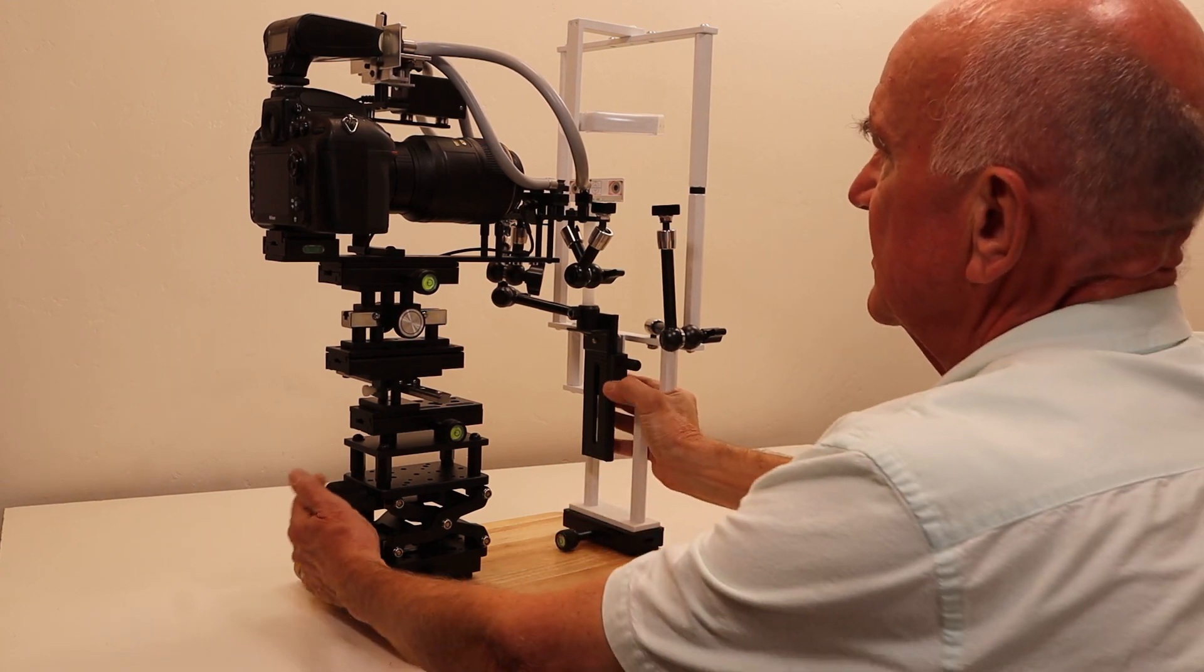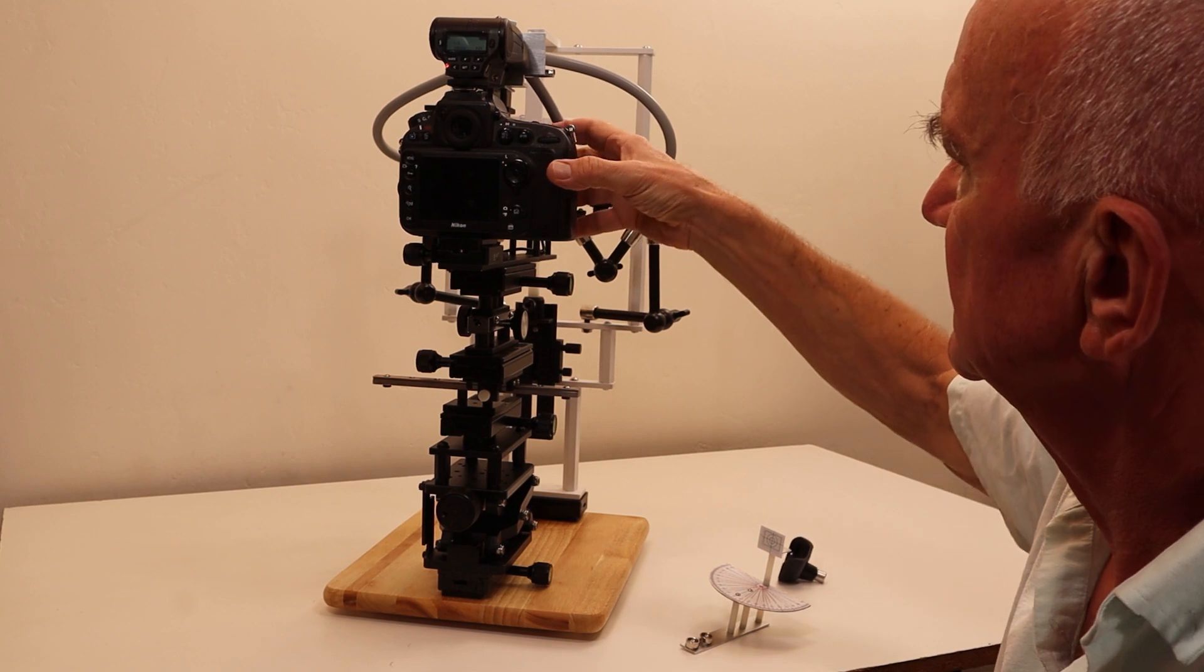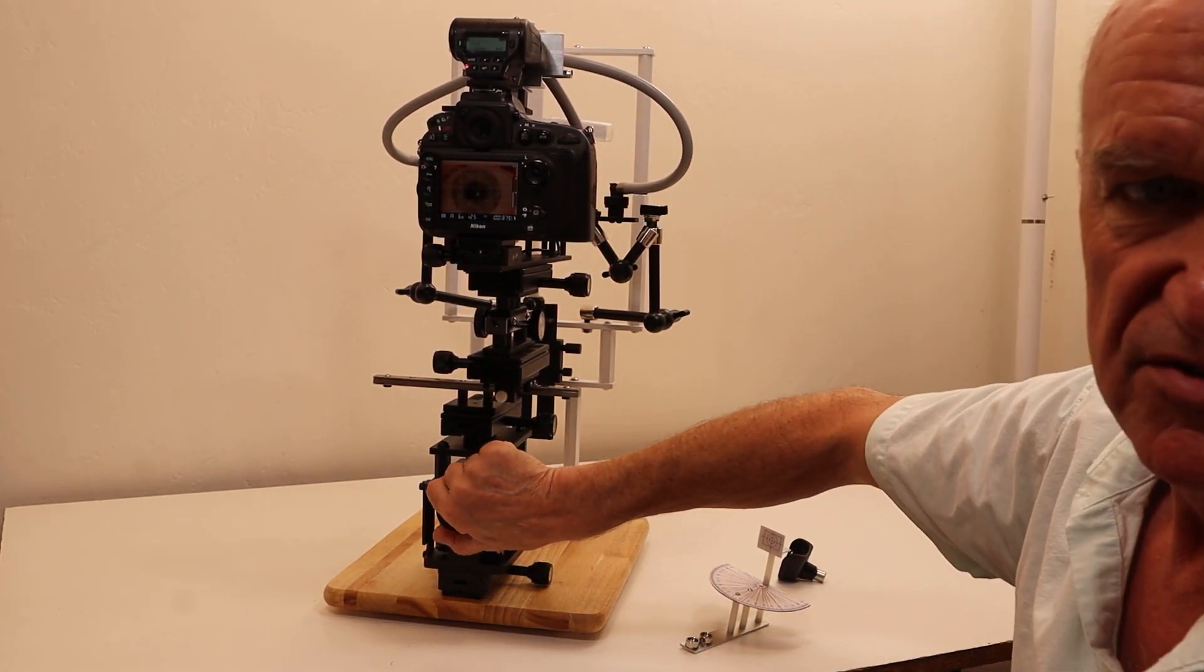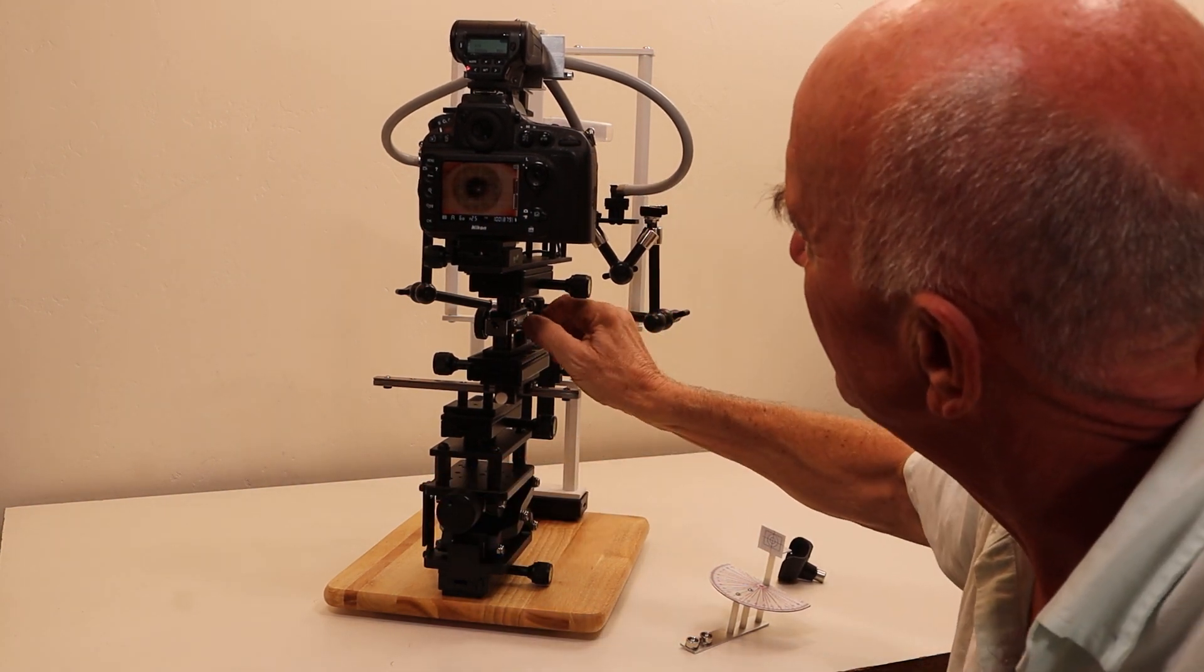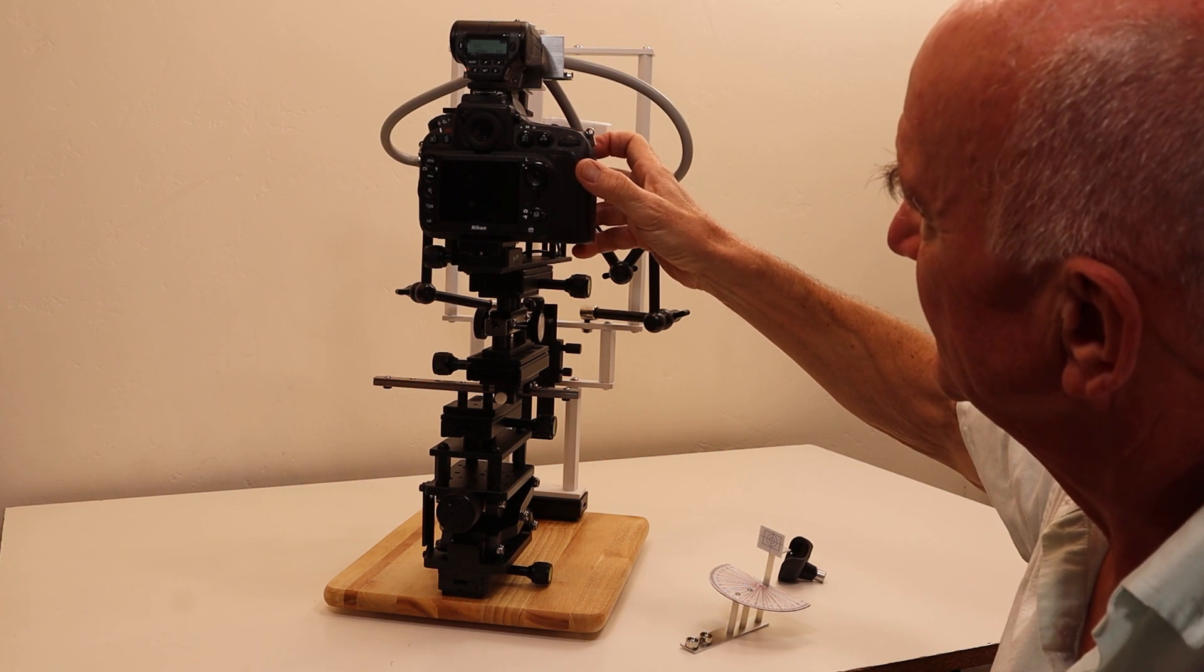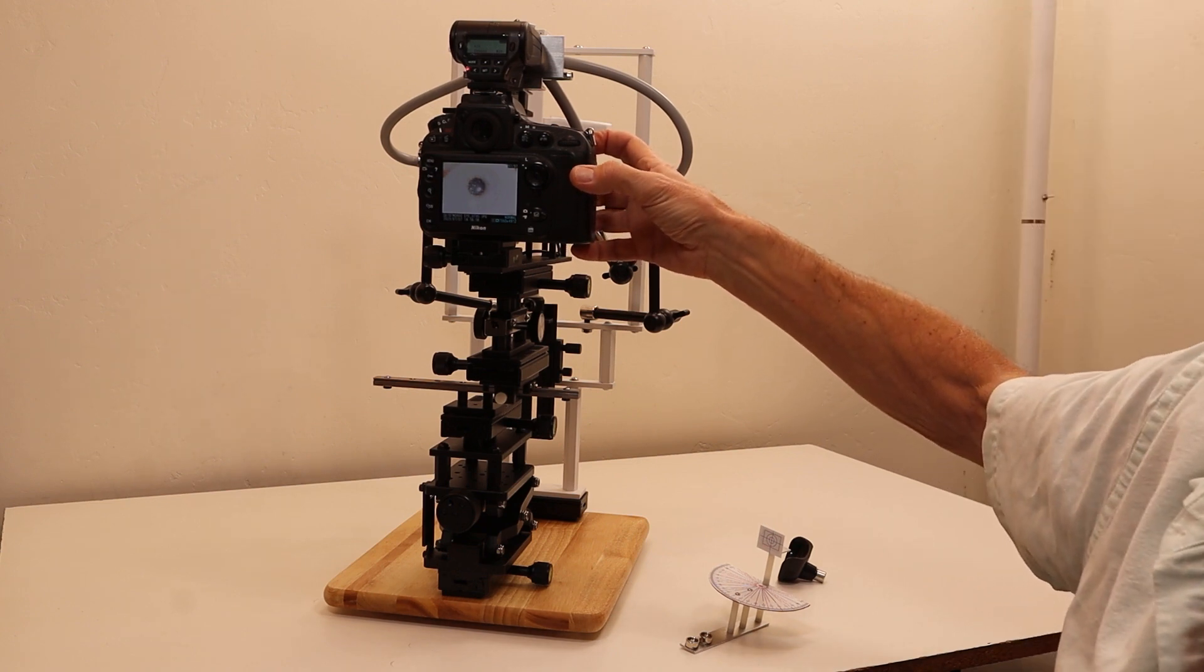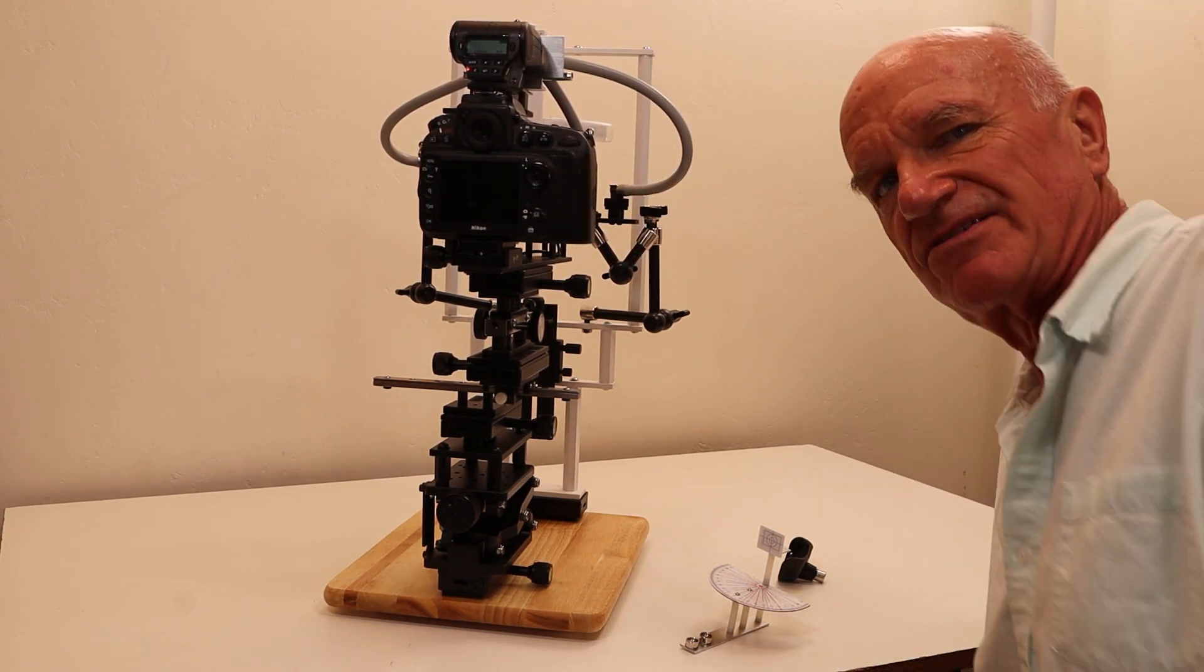That's useful if you want to check your camera. You can see the picture here, get it sharp and in focus, and take the picture. That's how it works.